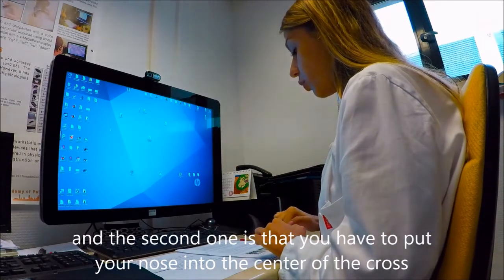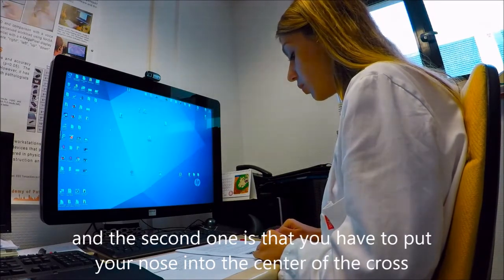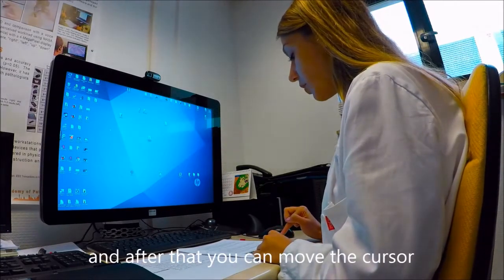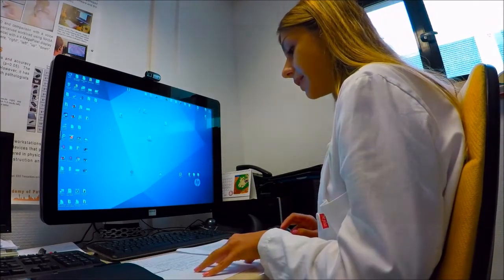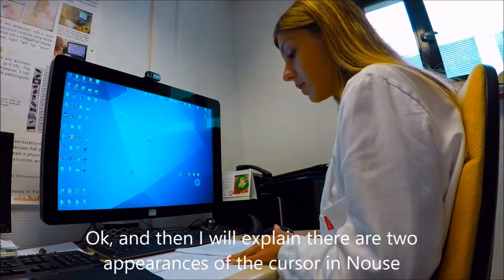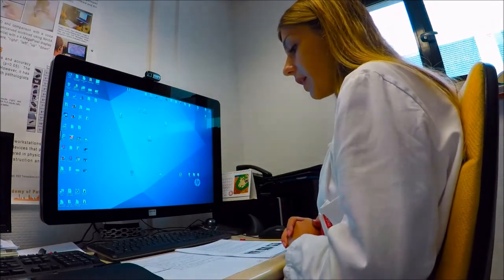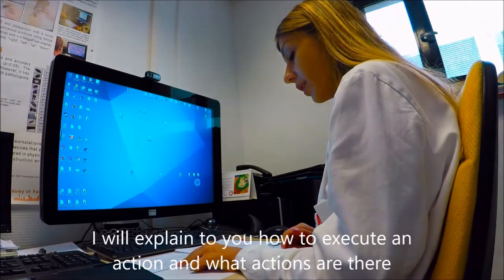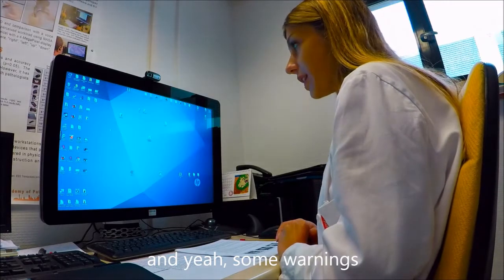In the second one, you have to put your nose into the center of the cross when it says center. And after that, when it says leave, you can move the cursor. Okay, then I will explain to you that there are 2 appearances of the cursor in Nouse software. I will explain how to execute an action and what actions there are. After that, some warnings. Okay, let's start.